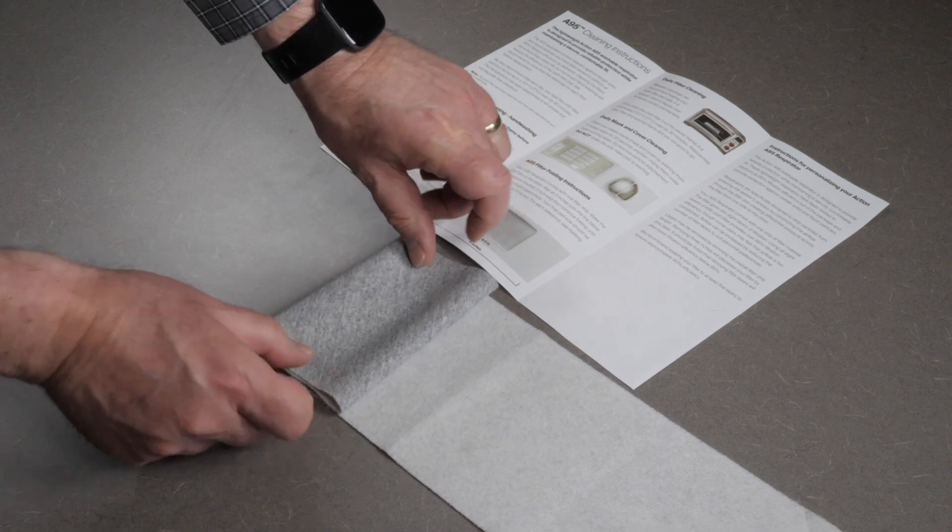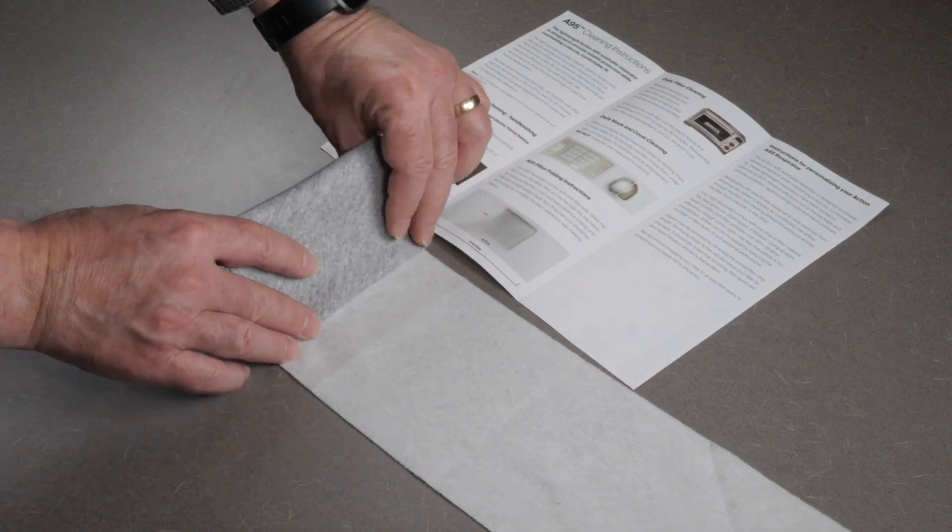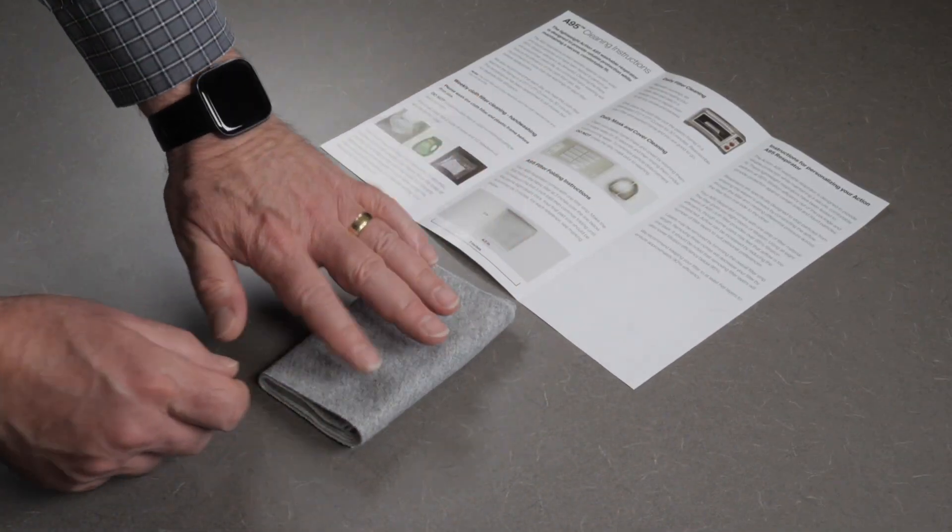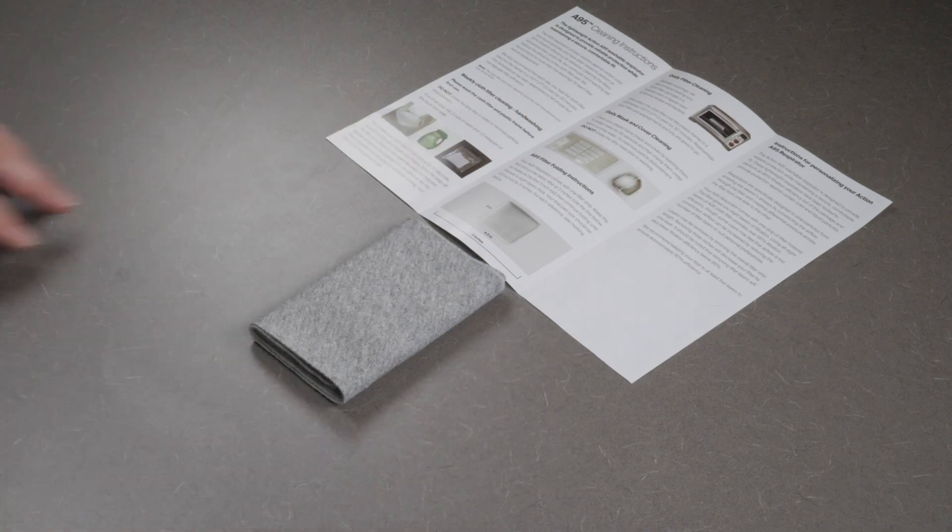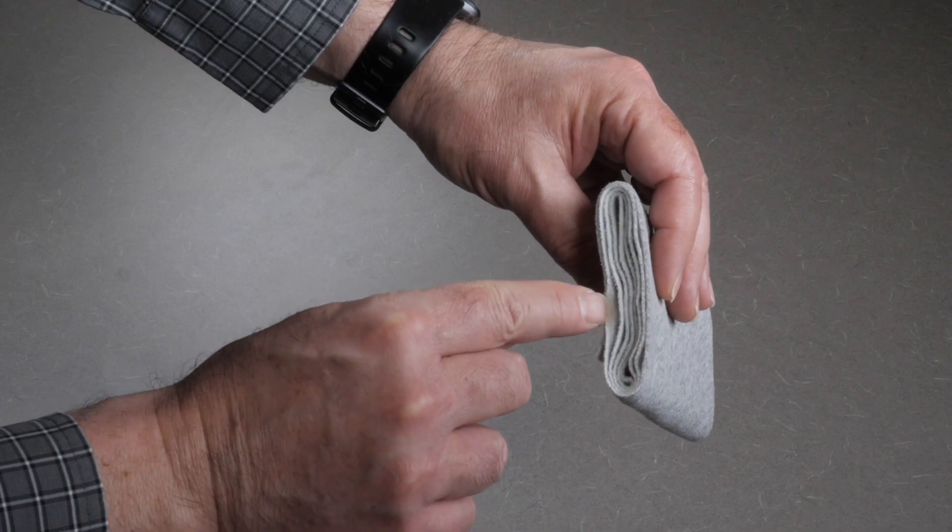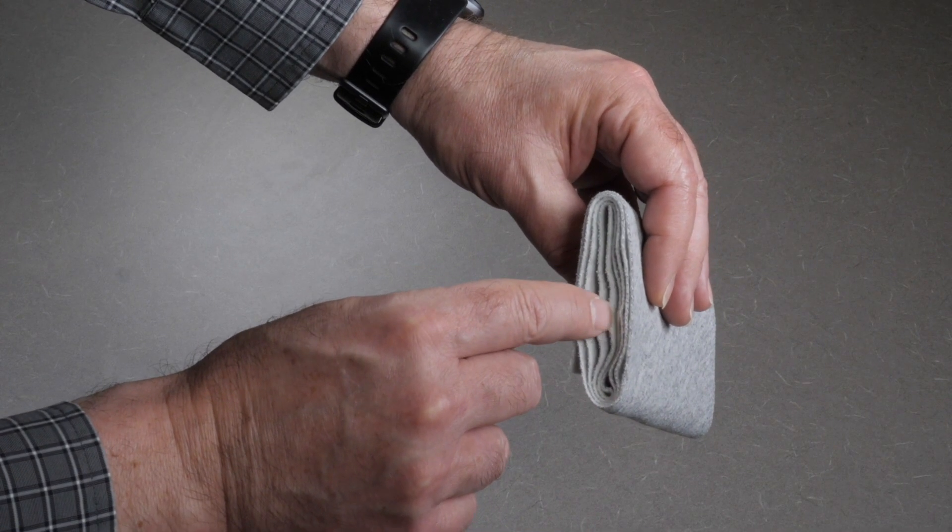You can cut off any excess fabric to achieve the eight layers.